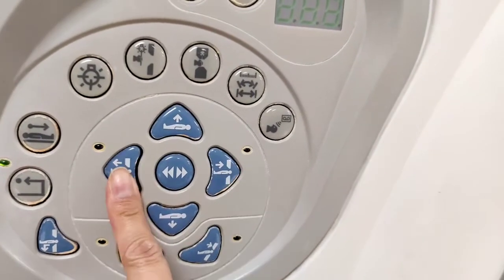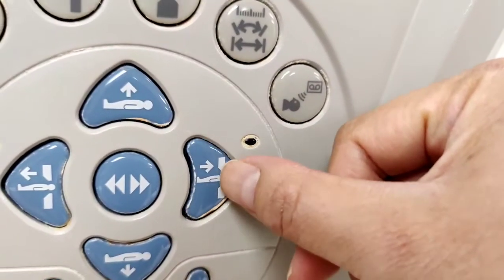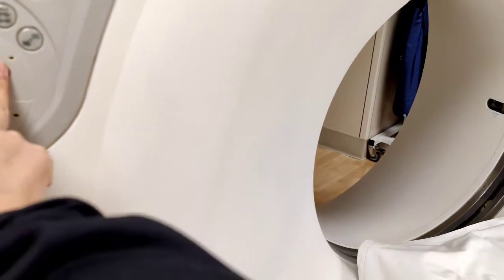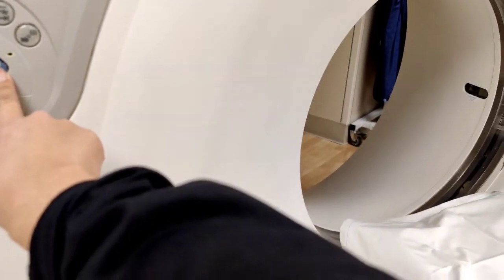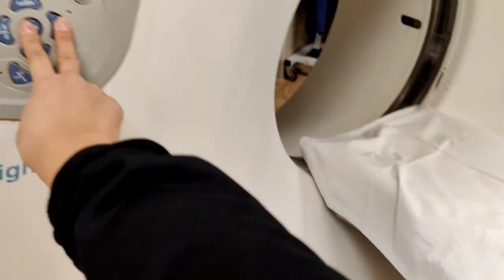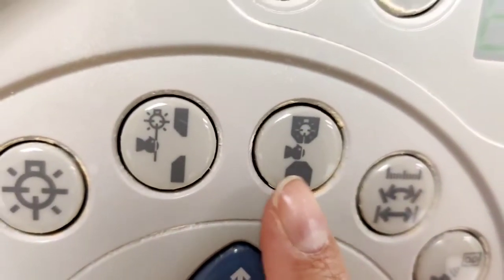Of course we have our up, down, in, and out controls. When you see the line here, that means the gantry. This button just makes it a little faster, so you can use both together and it's a lot faster than it going very slowly. Once you press the speed button it moves really fast.